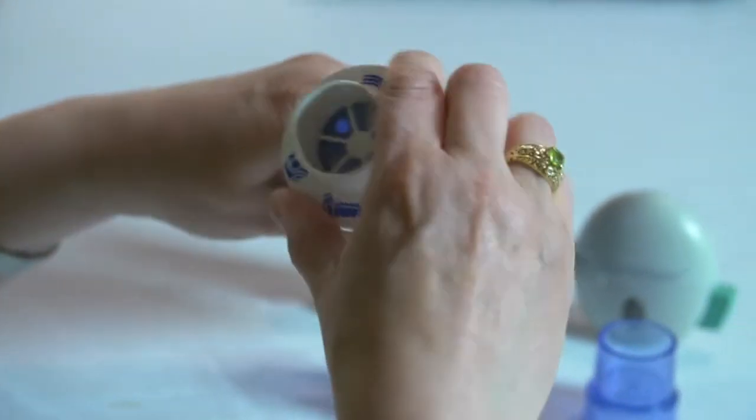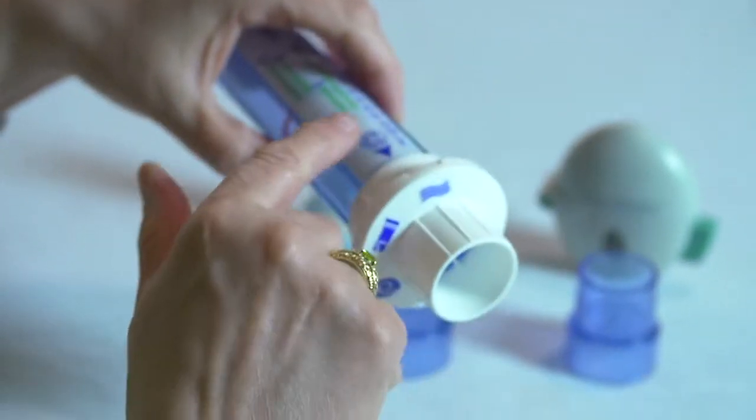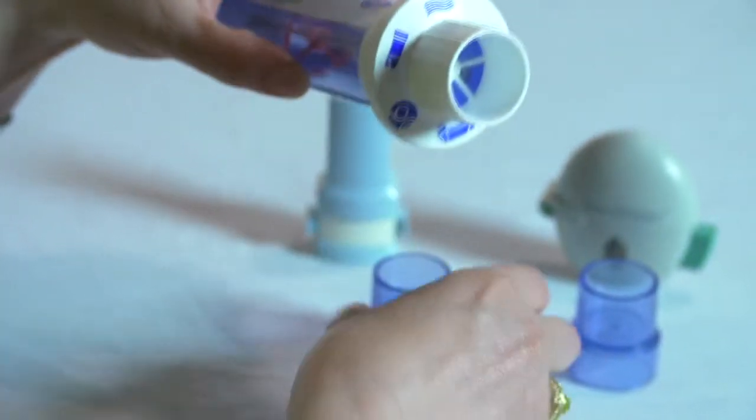The rates for the Diskus, Flexhaler, or metered dose inhaler are built into the rotating dial. The inhaler is the wavy lines. There are pictures for the Diskus and Flexhaler. There is another type of inhaler pictured, but that one is not available in the United States.